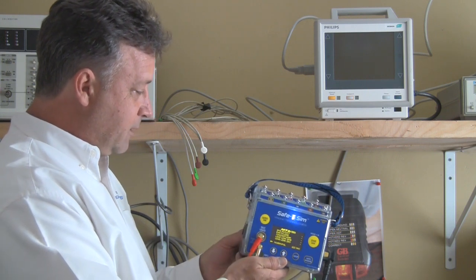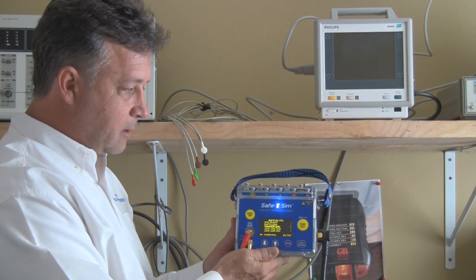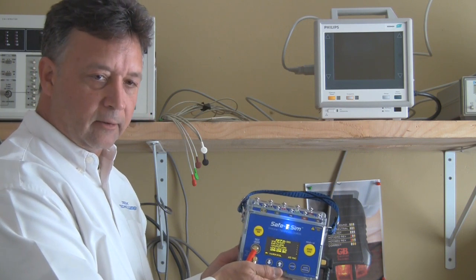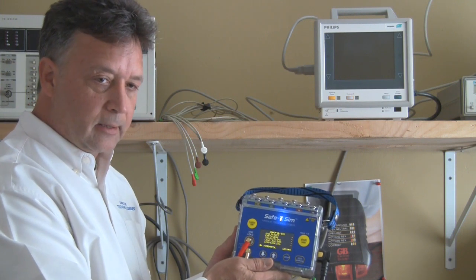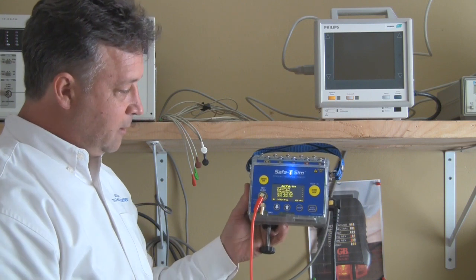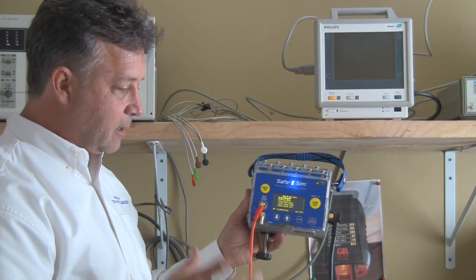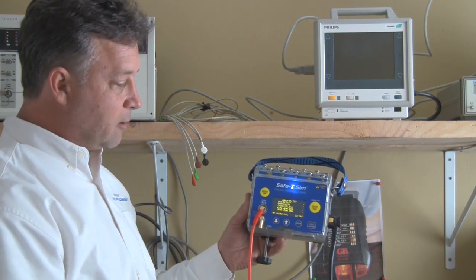What's really different about this product? We really focused on making it as small as the smallest handheld electrical safety testers around, but as smart as the bigger boxes that are very expensive — making it capable of doing automated testing defined by the user.